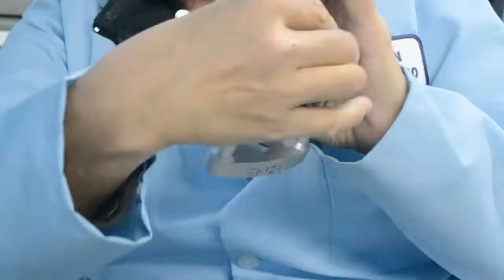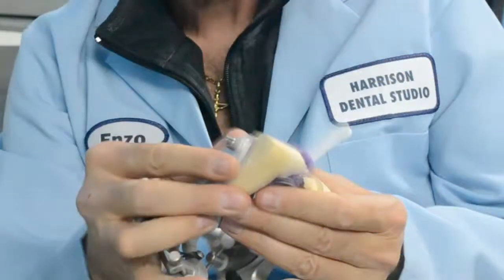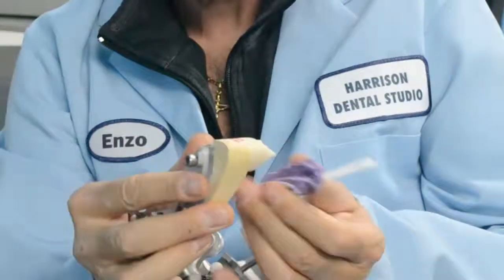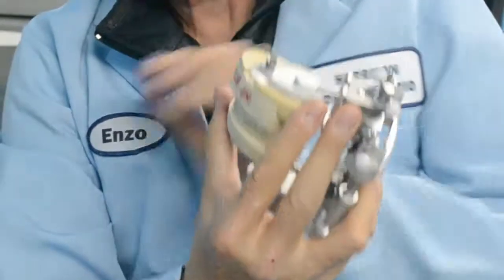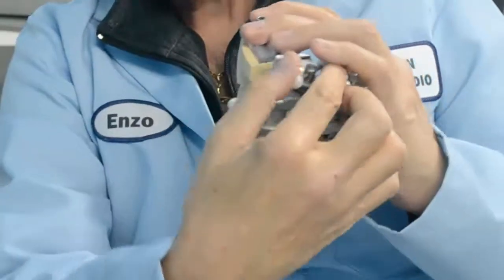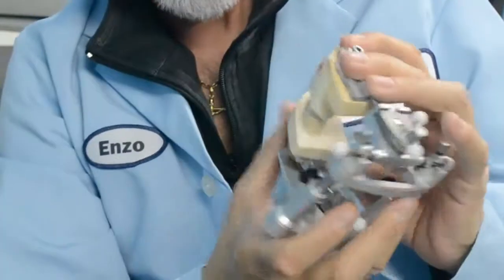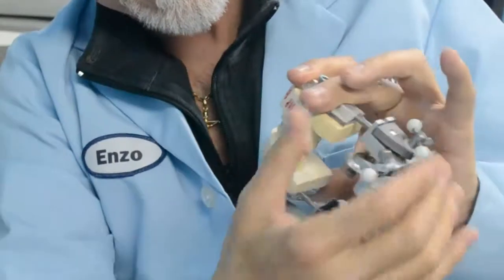It's nearly instantaneous. The best feature is, if you remove the triple tray and realize that something is off or you made a mistake, instead of starting over and re-articulating, you can just loosen the screws, adjust, and re-lock it. You will have the case re-articulated. It can't be simpler, and it's a huge time saver.